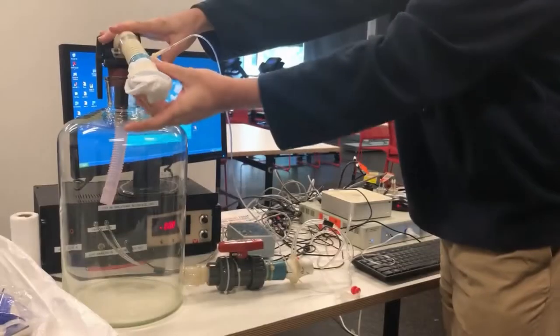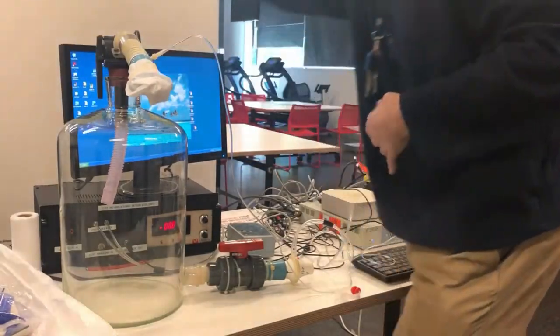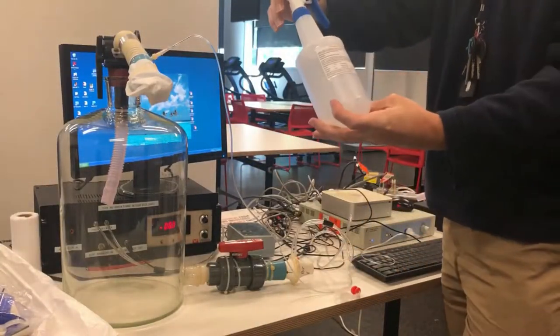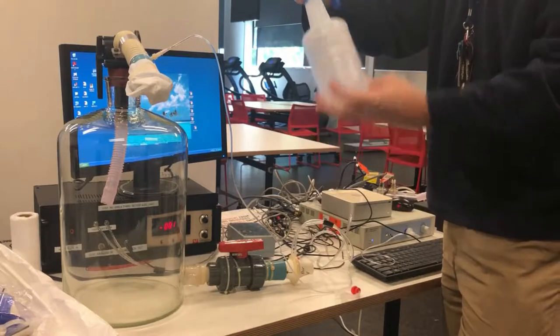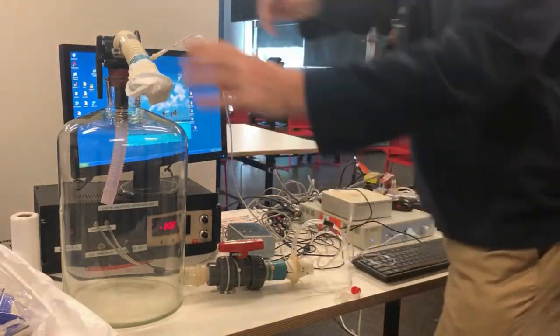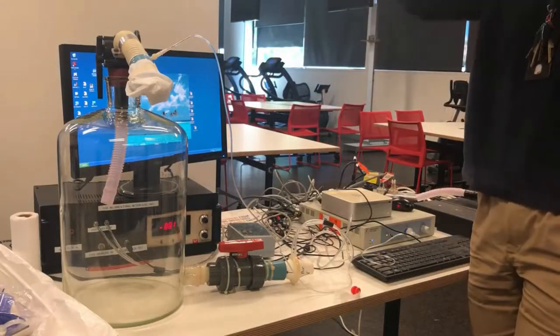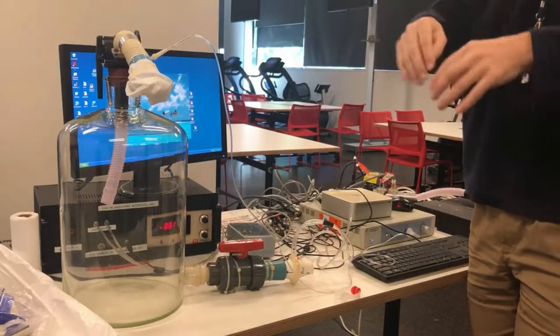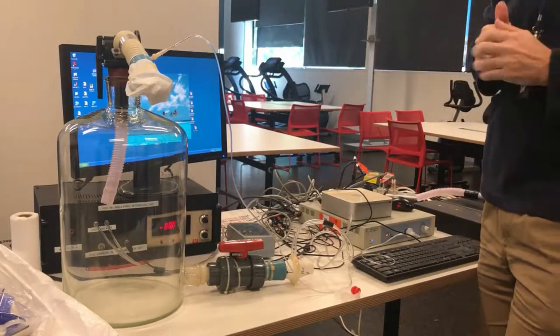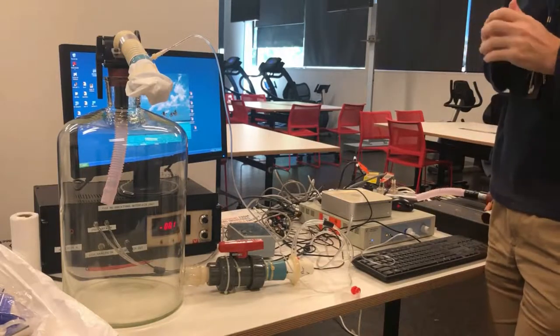We always sterilize the mouthpiece using 80% volume-to-volume ethanol, and then we usually wrap a tissue around it so subsequent dust doesn't drop on it and the student feels reassured that it's been cleaned, as opposed to just sucking on something that all the other students have used.